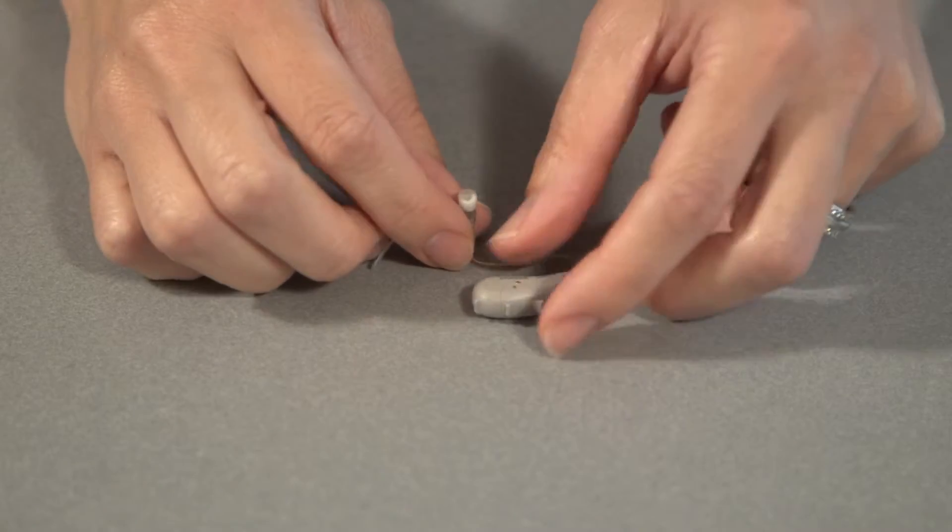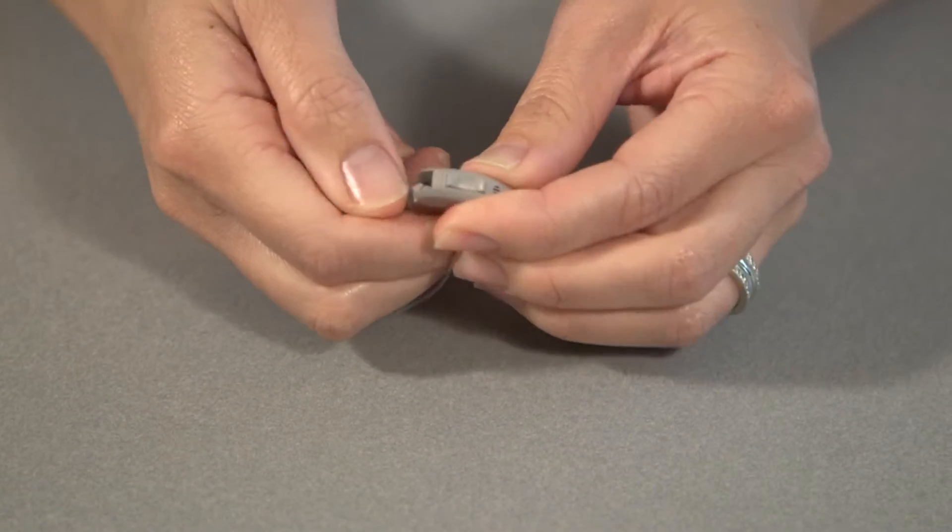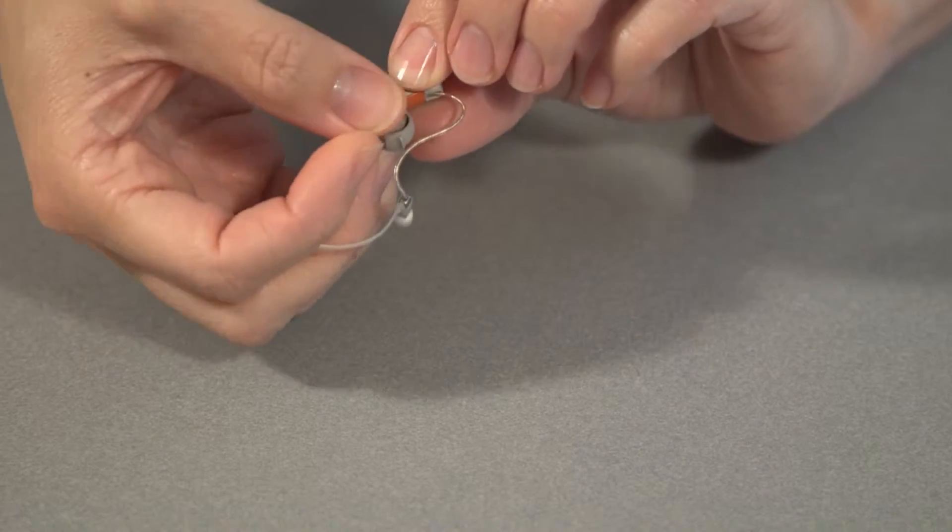The first thing you'll want to do is check and make sure that you have a good battery in there. So you'll change the battery, put in a new battery.